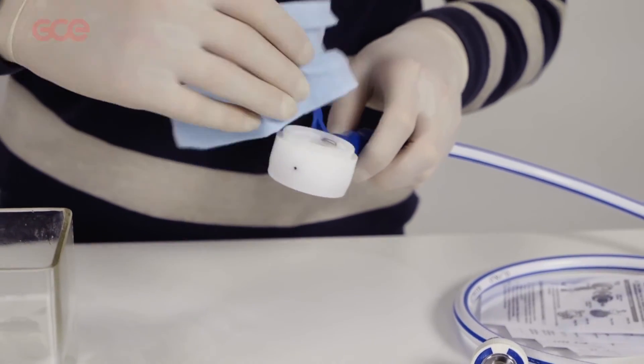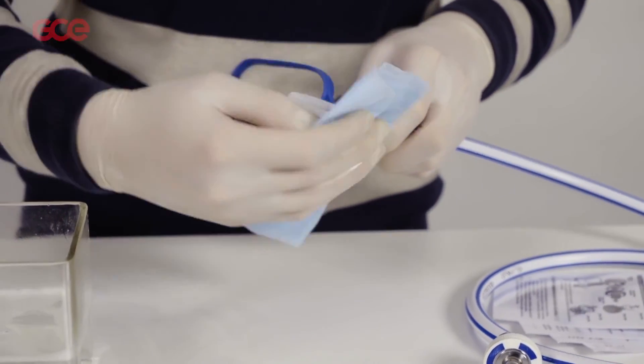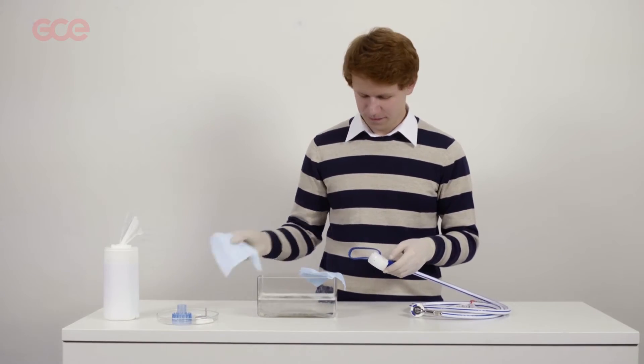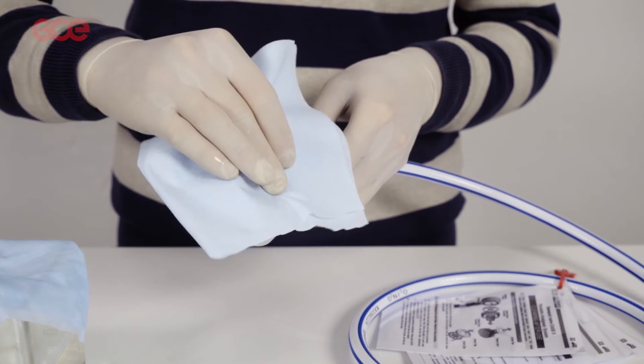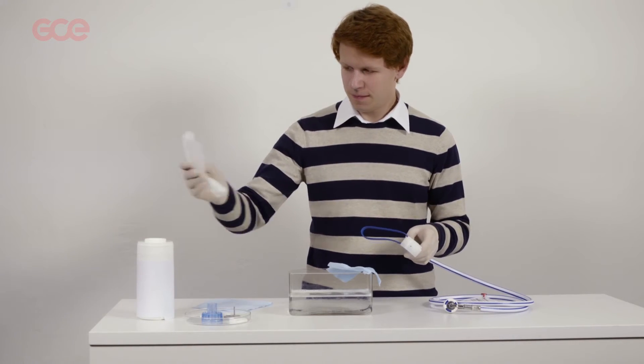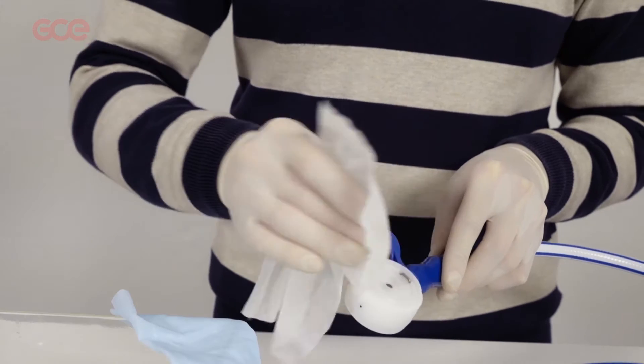Clean the external surfaces of the valve with a lint-free cloth slightly moistened in soapy water. Dry with a lint-free cloth. Disinfect the outer surface with Surfanios disinfecting wipes.